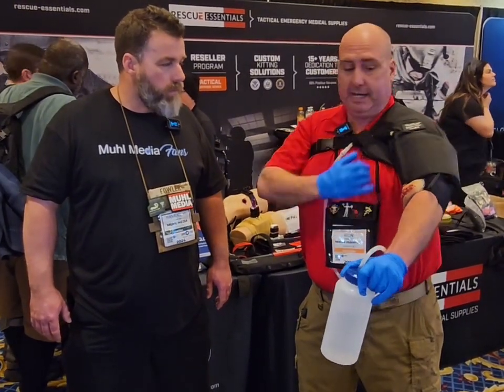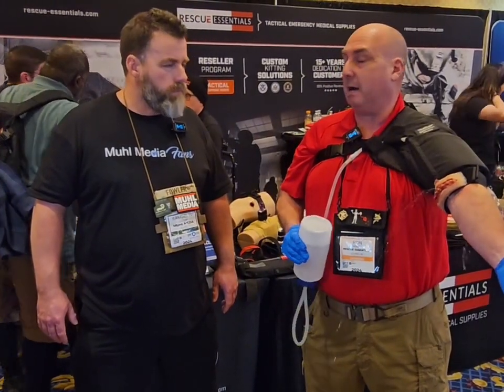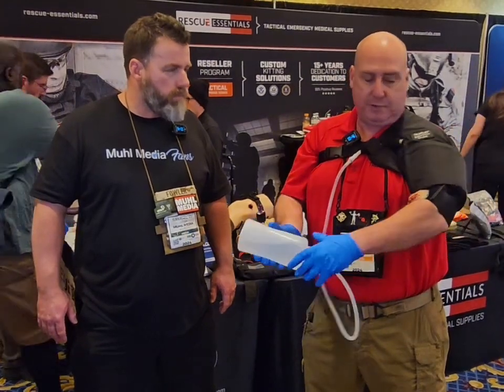What we do see in training is that when they pull the initial slack out, it will cut that arterial flow by like 50%, if not more. So it's just a great training tool.